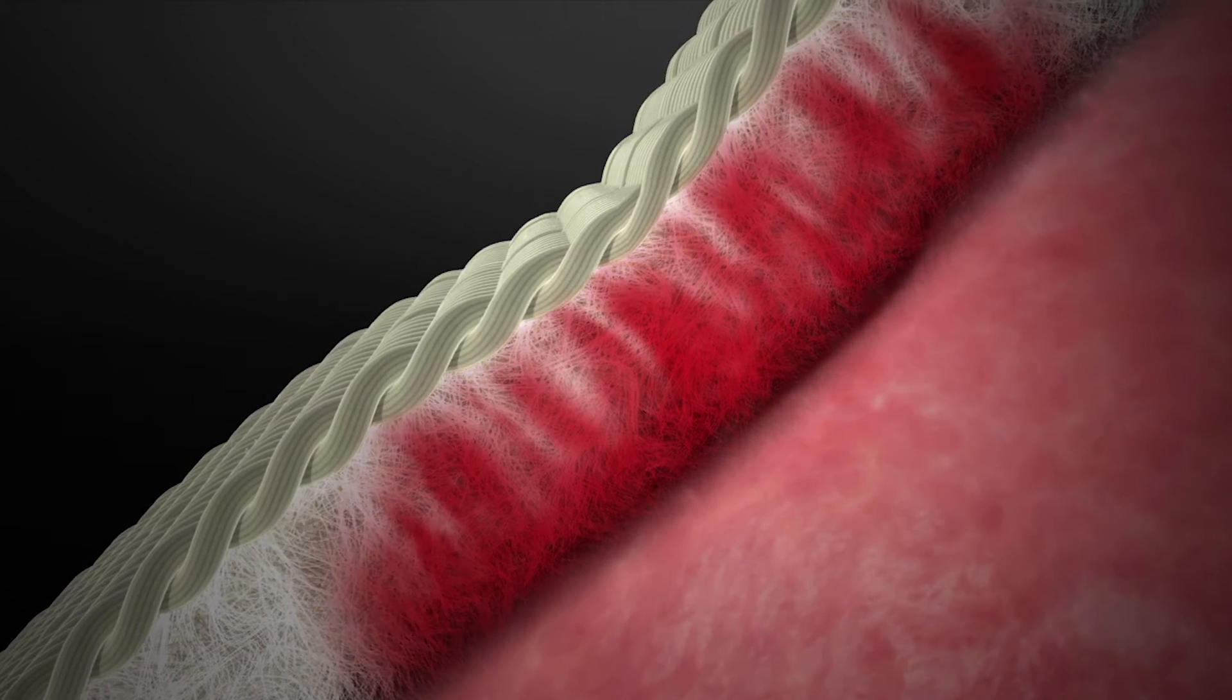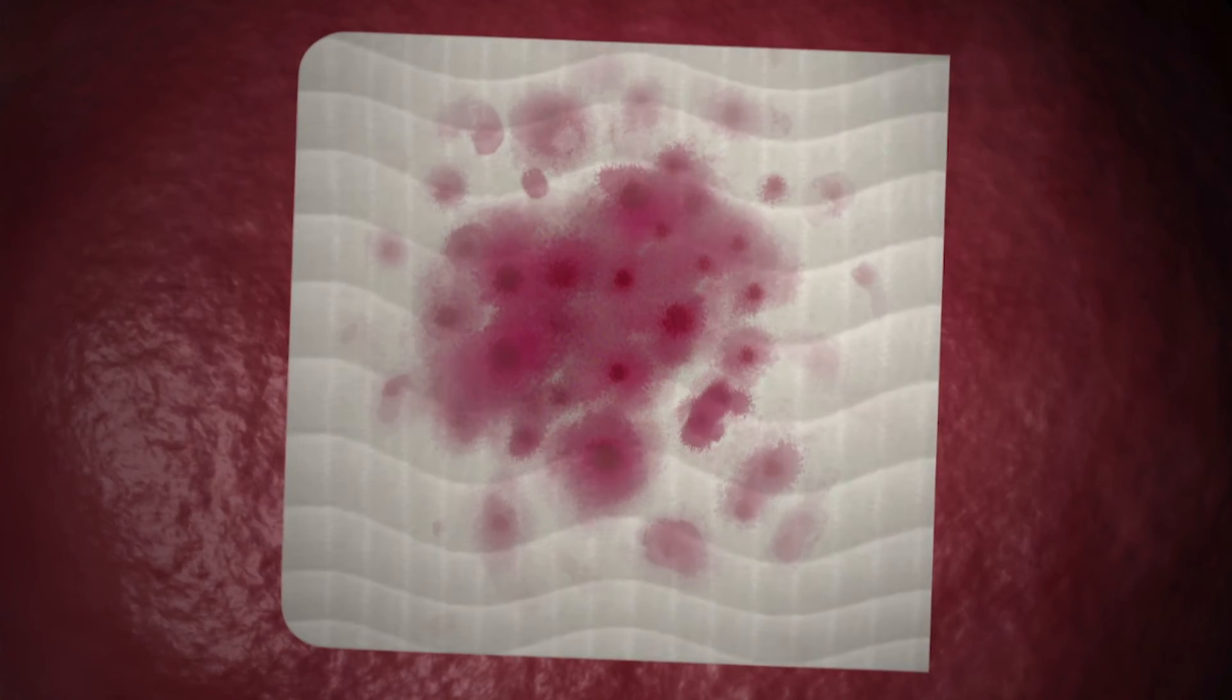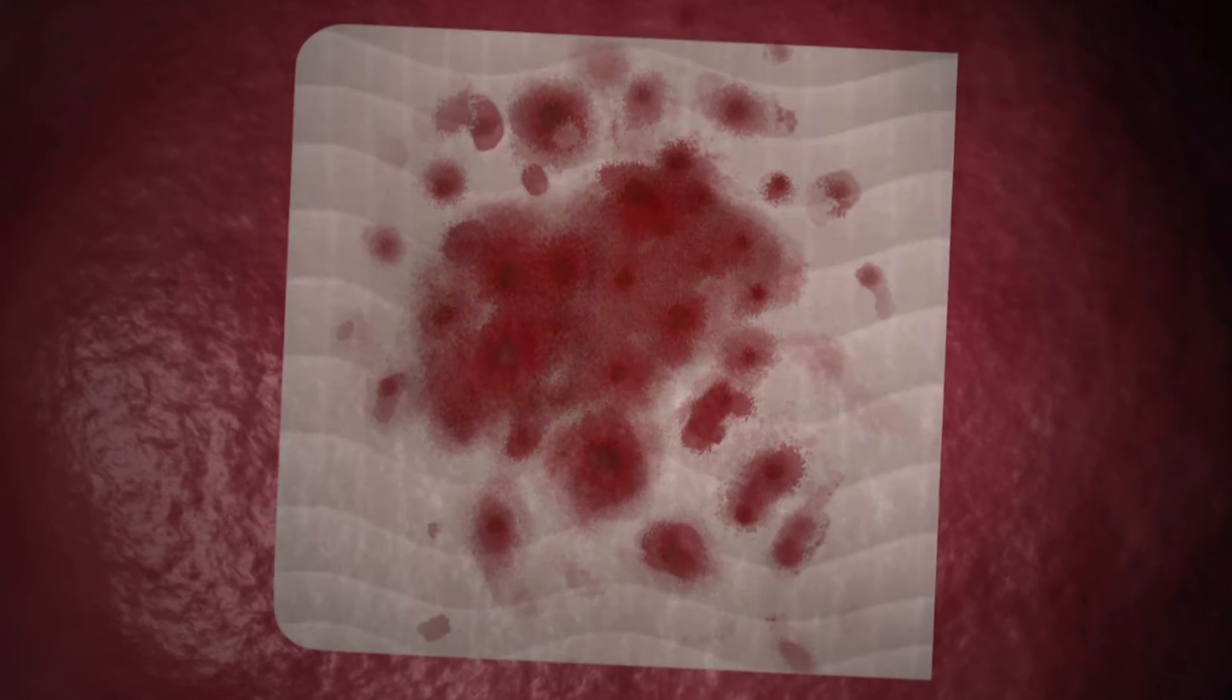Due to the unique structure of the patch, blood passes through the fiber as clotting occurs, rather than pooling beneath it.